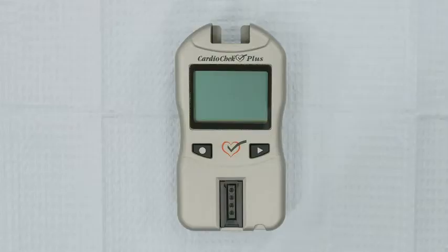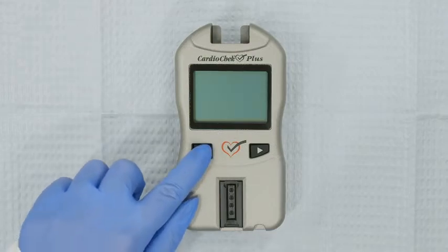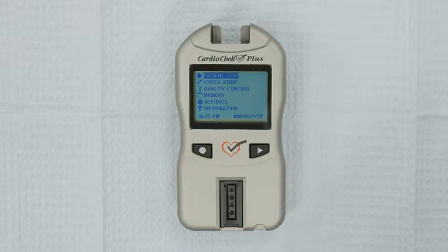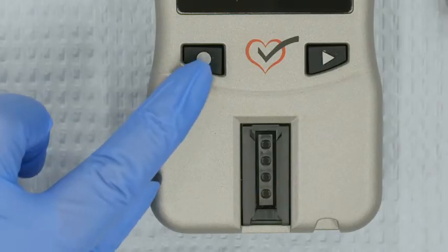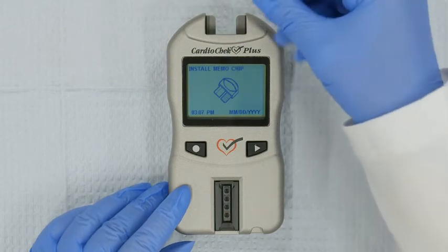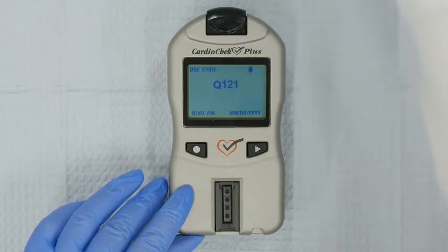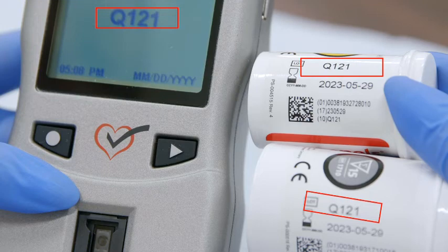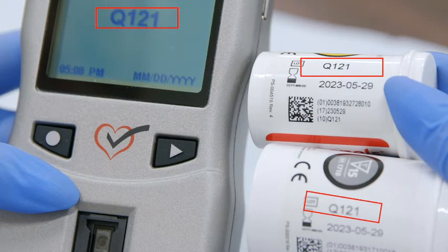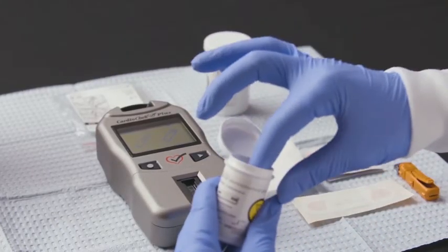Perform a three-point check. Turn the analyzer on by pressing either button. Patient Test will be highlighted in the main menu — press Enter. Install the memo chip as instructed on the analyzer screen. A lot number will appear. Make sure that the lot numbers on the screen, on the memo chip, and on the test strip vials match. Set the analyzer on a flat, stable surface.